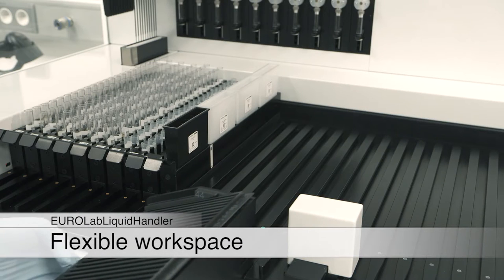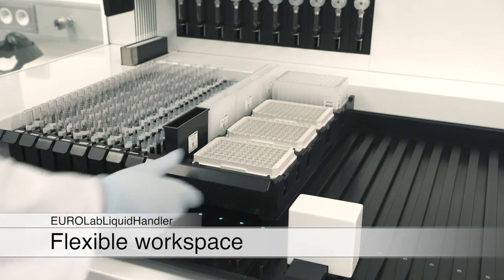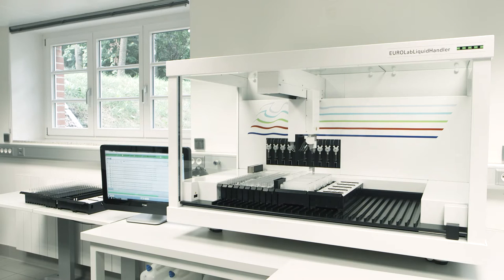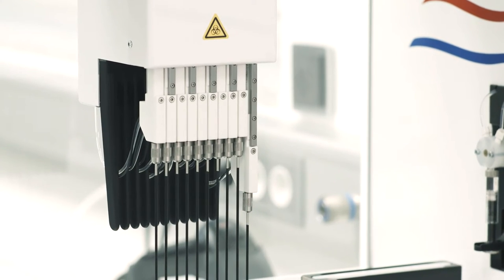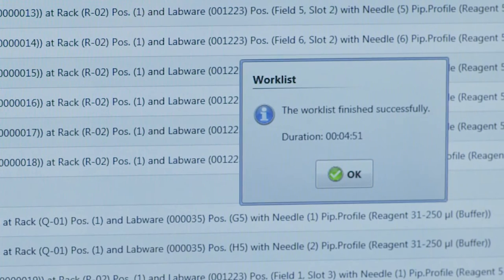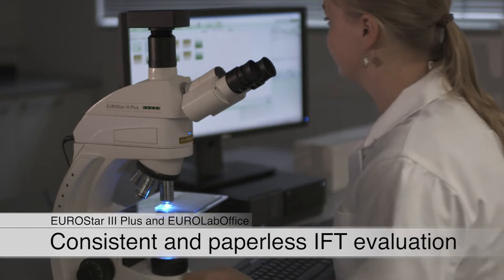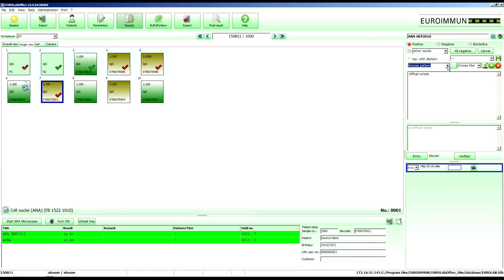In addition to immunofluorescence, also blots, ELISA or individual liquid handling applications can be processed. After the incubation, the results can be entered into EuroLab Office paper-free and directly at the microscope for more efficiency, comfort and safety.